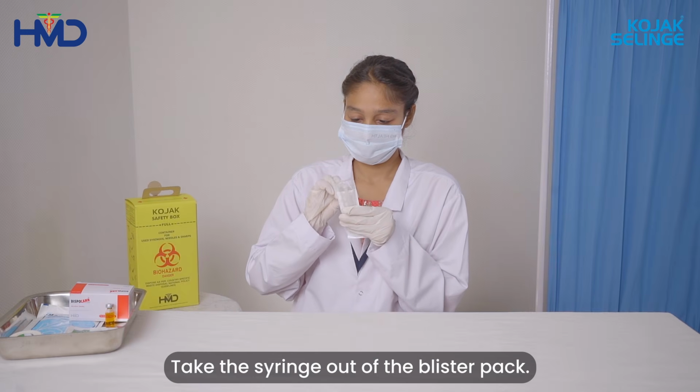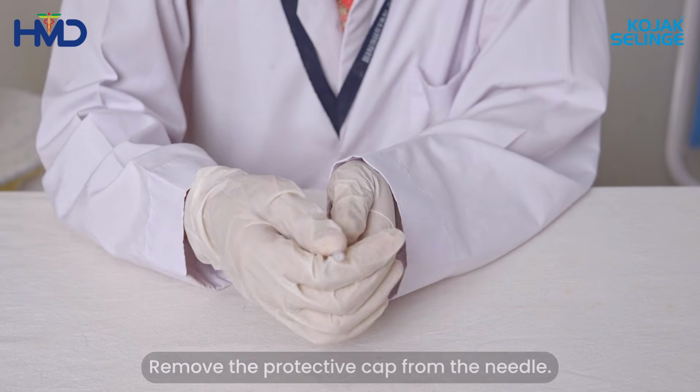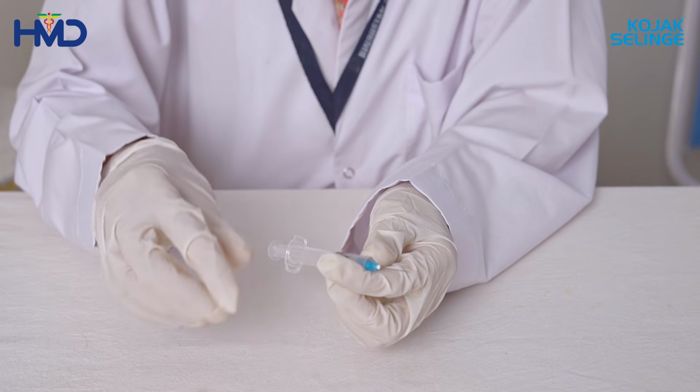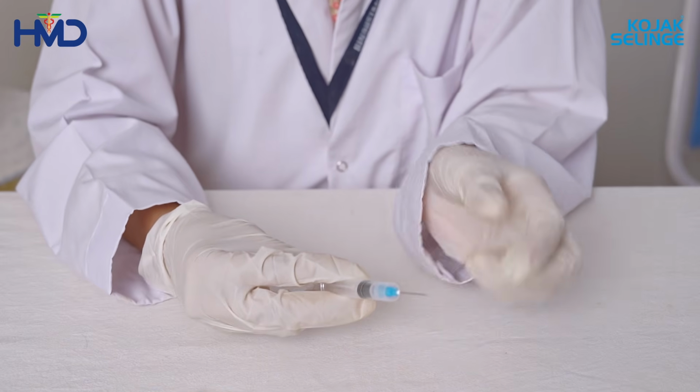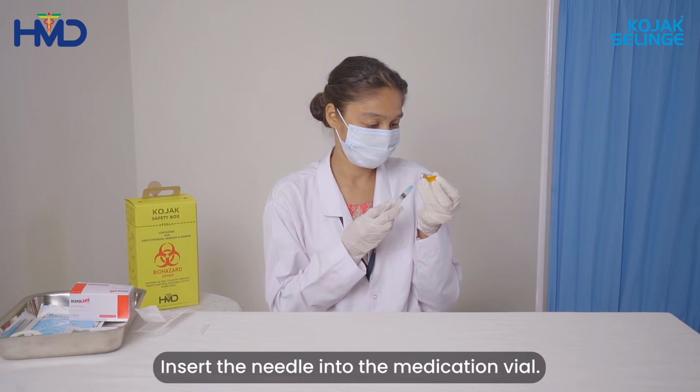Take the syringe out of the blister pack. Remove the protective cap from the needle. Be careful not to touch the needle while pulling the protective cap. Insert the needle into the medication vial.